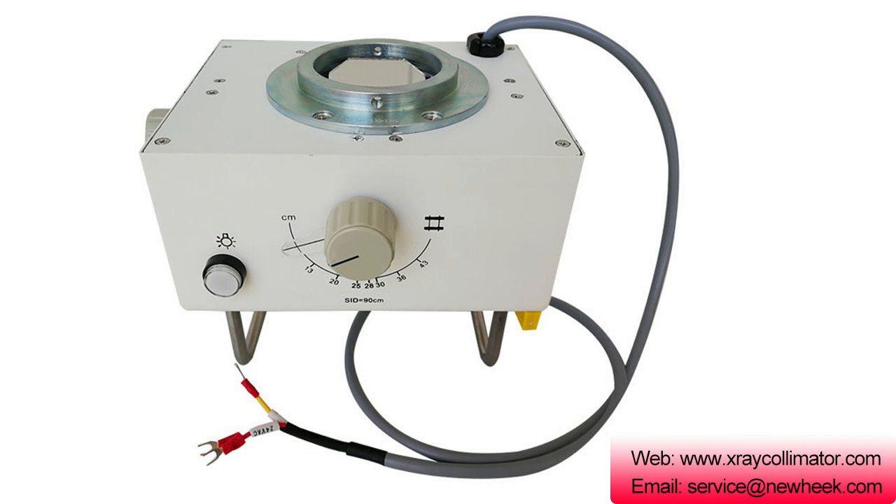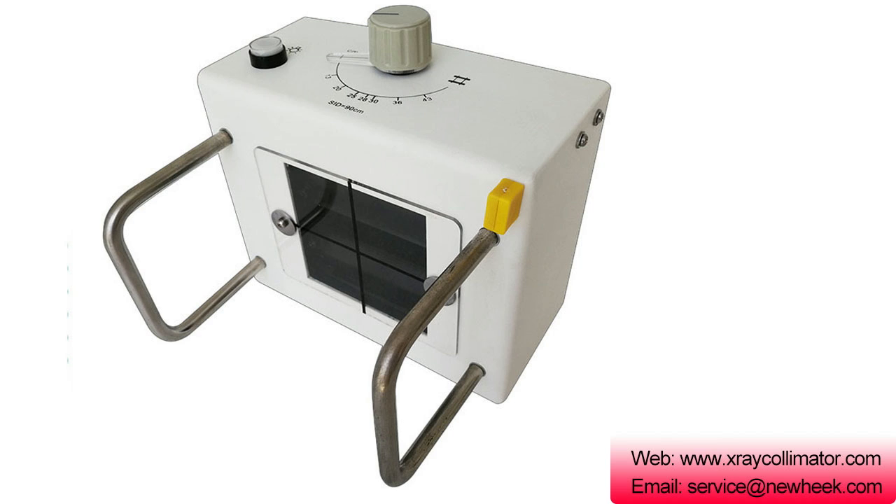Lamp: 24 volts, 100 watt. Single lighting time: 30 seconds. X-ray tube focus to mounting surface distance: 60 mm, adjustable according to requirement. Shielding leaves: 1 layer. Fixed filtration: 1 mmAl at 75 kVp. X-ray collimator manual model NK-103 and NK-202.